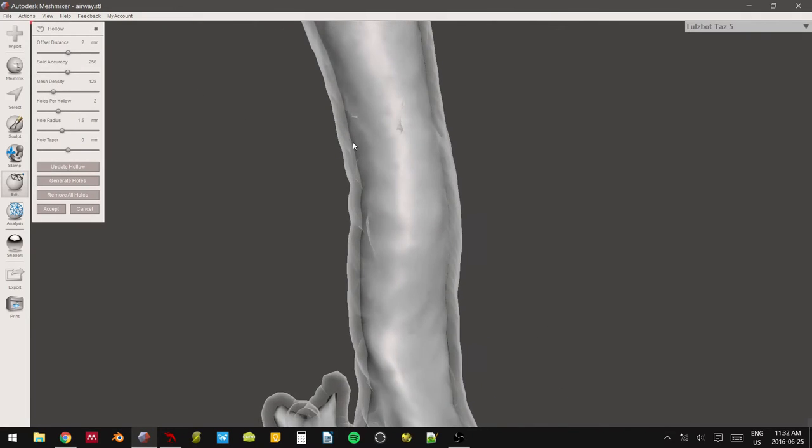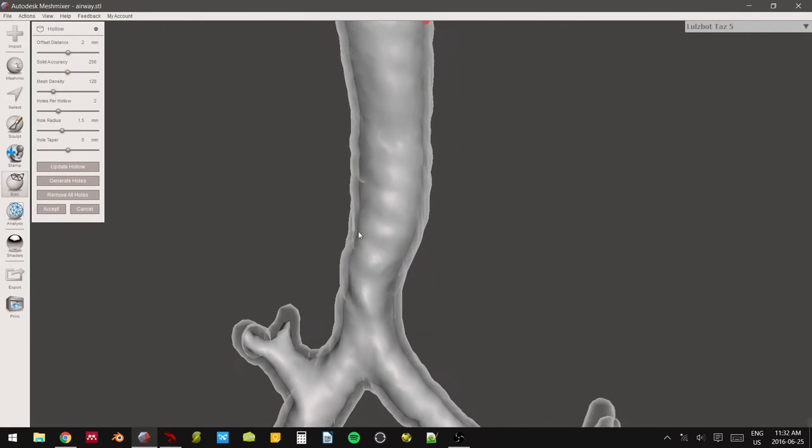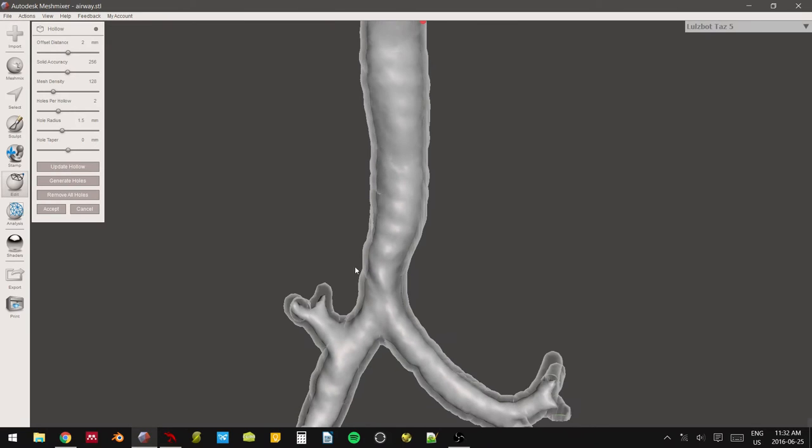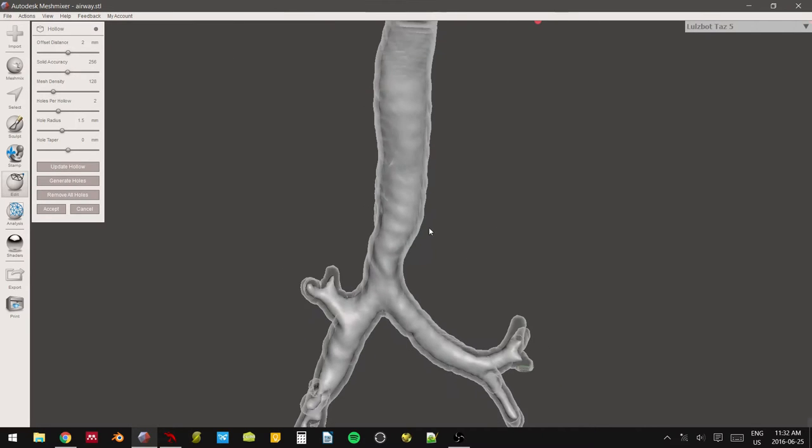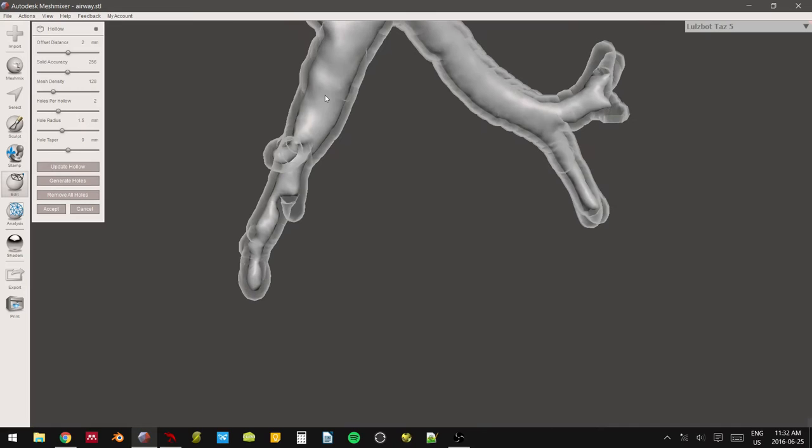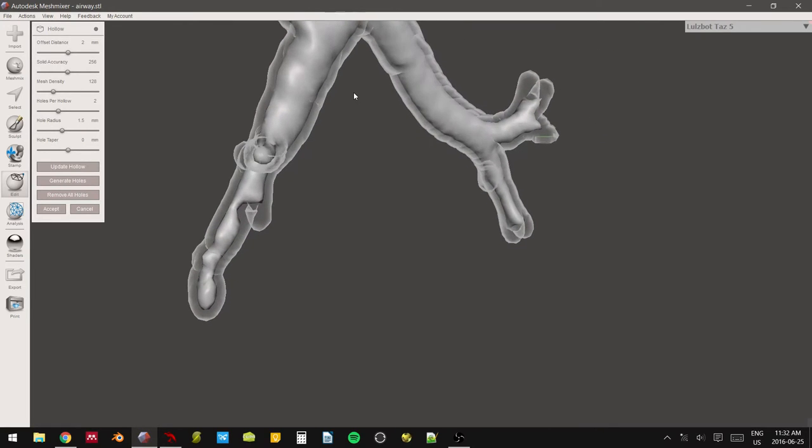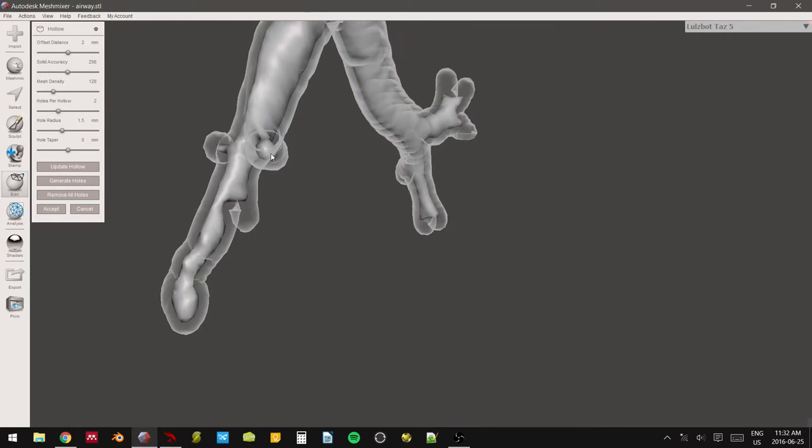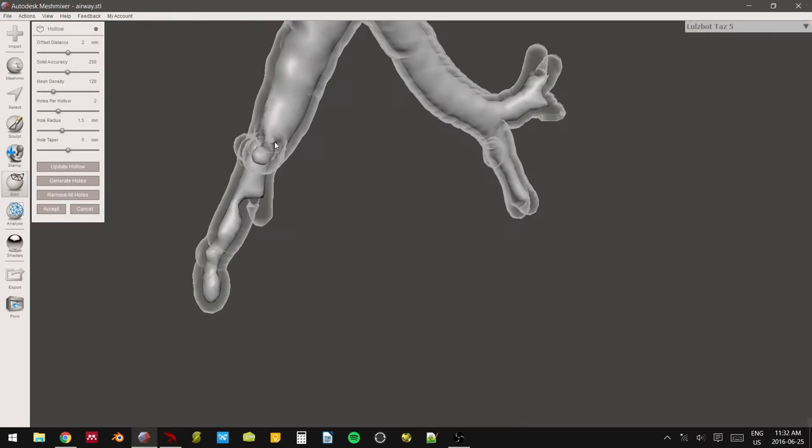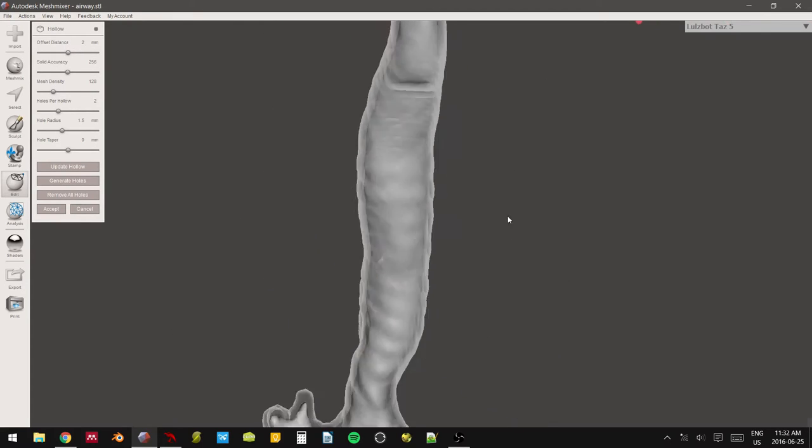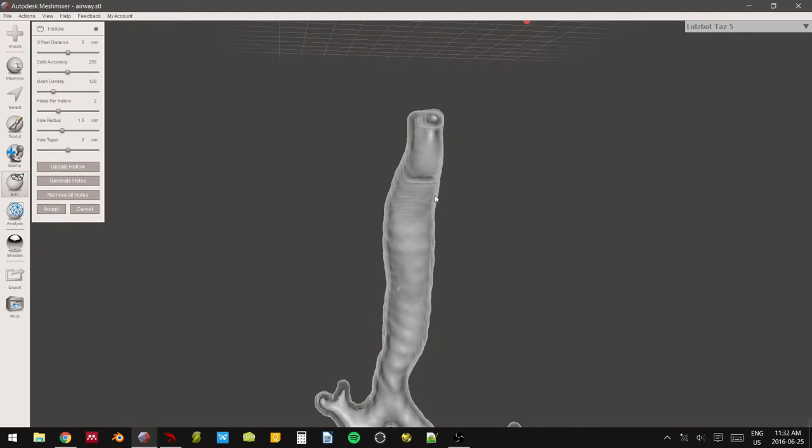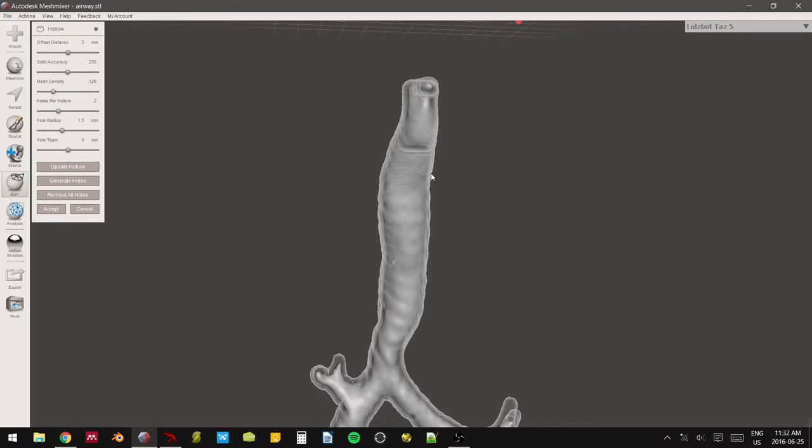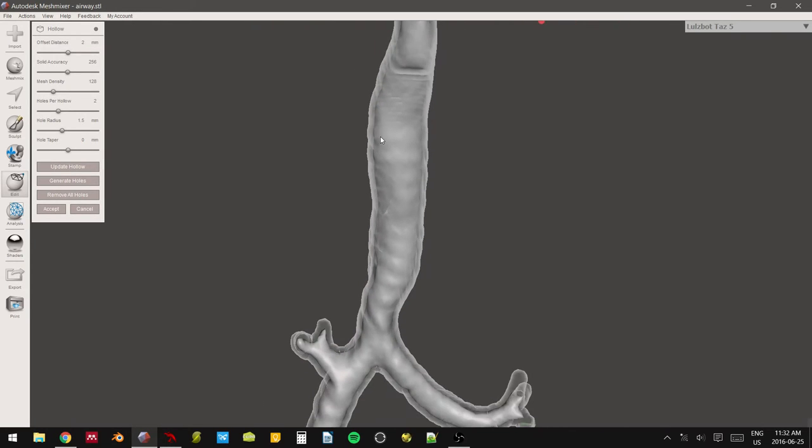So the gray outline is your outside, and then the actual interior is going to be the solid gray. And you can check it. This is going to be the... Whatever's in solid gray right now is going to be removed from the model. And whatever's in this clear see-through is going to be kept. So right now, the offset distance is at two millimeters, which basically means that we're going to be removing our original model, because we set the original offset for the extrusion at two millimeters. If we then set the offset to two millimeters inside our hollow menu, we're essentially just backtracking away from the original extrusion and just removing the original size of the model.